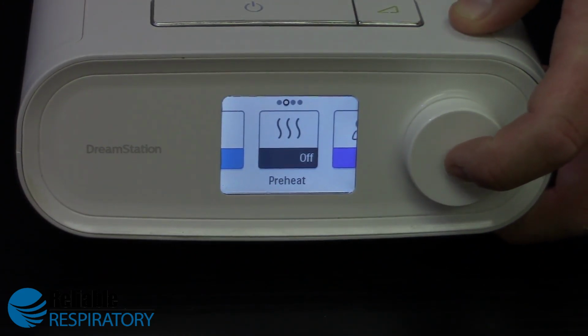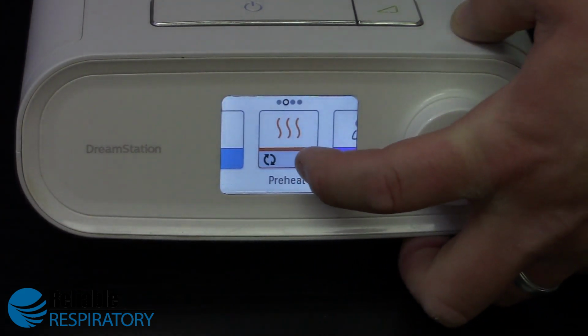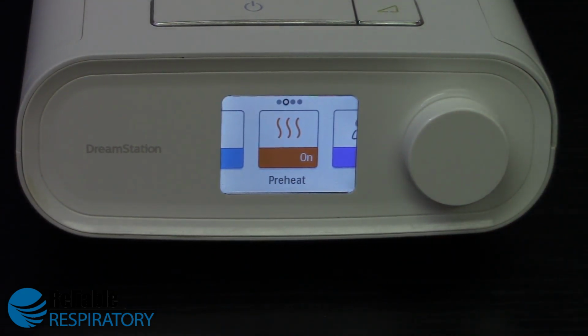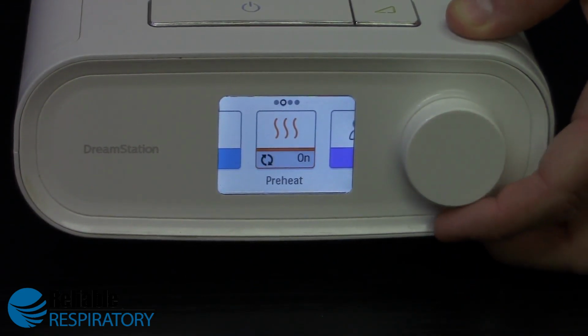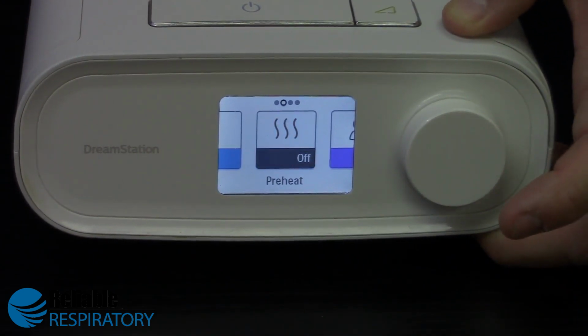So to enable the preheat feature, go ahead and click the round dial, turn the dial to the right, to where it'll say on, click again to confirm. And so now it's just heating up the plate inside the humidifier without delivering any air pressure. It's just if you like that hot, humid air right when you go to bed, it gives you that option. Again, purely a comfort feature. And if you wanted to shut it off, you would push the round dial in again, turn that back to the off position, and click the dial to confirm.